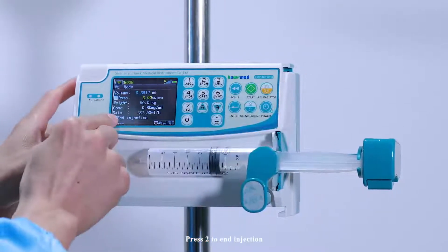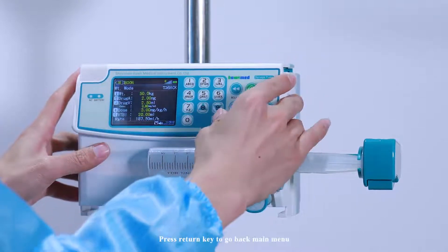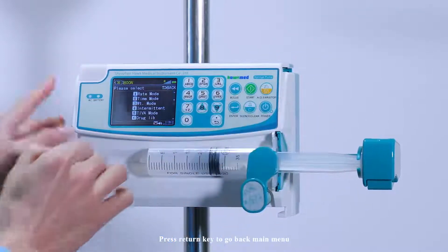Press 2 to end injection. Press return key to go back to main menu.